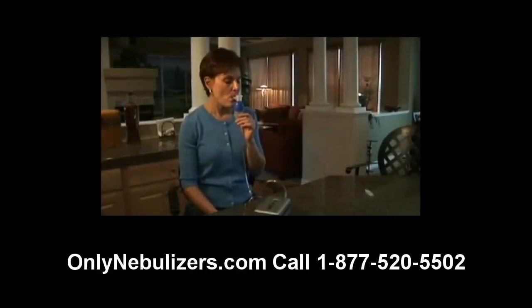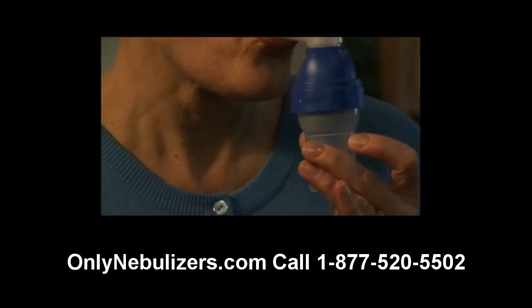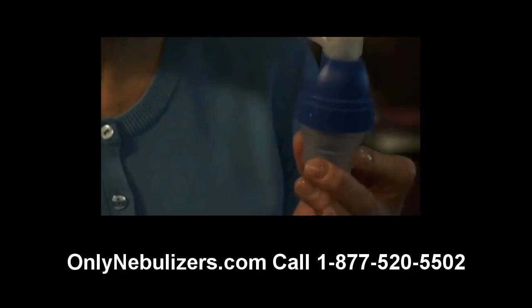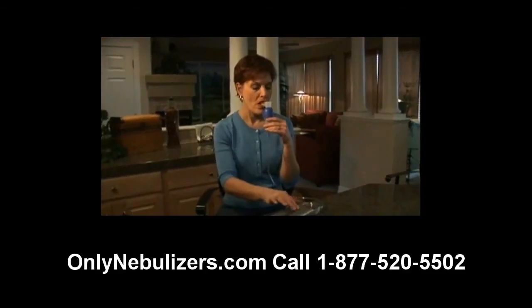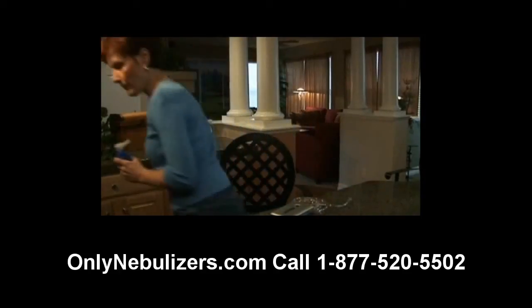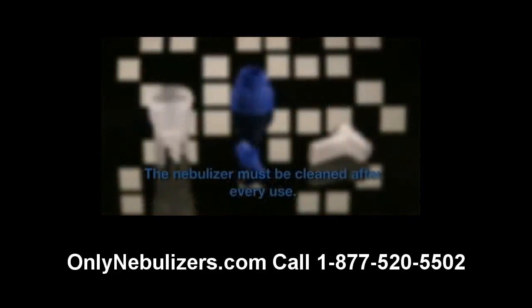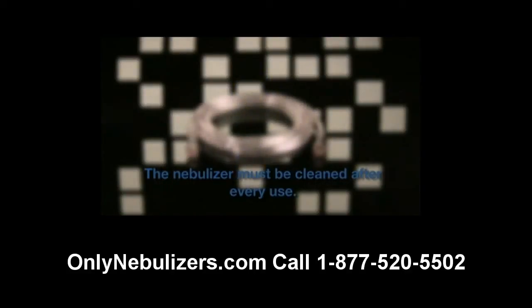Please note that medication can collect on the sides of the nebulizer during treatment. If this happens, gently tap the nebulizer and the medication should drop back into the cup. When you've completed treatment, turn off the compressor and unplug the unit from the wall power outlet. Without exception, all parts of the nebulizer, except for the tubing, must be cleaned before initial use and after each use. The inside of the tubing does not have to be washed because only filtered air passes through.